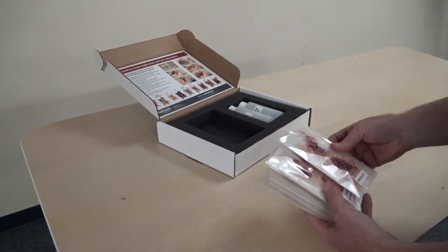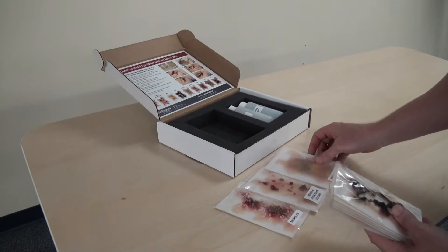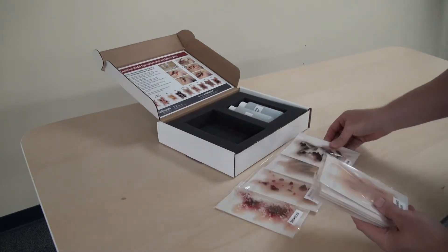Including shingles, benign and cancerous lesions, bruises, burns, thin skin, age spots, eczema, dry skin, and lesions.